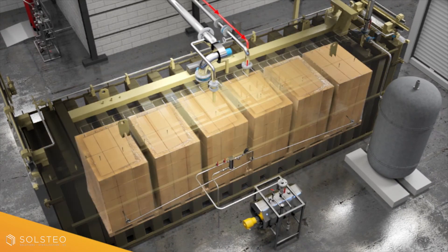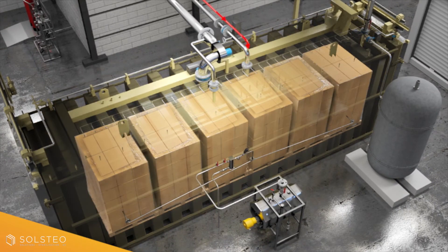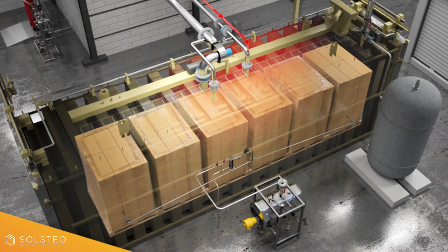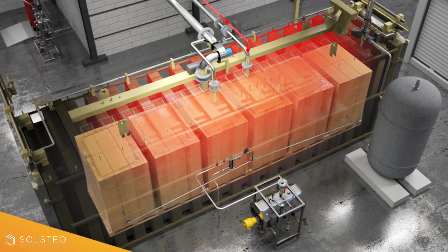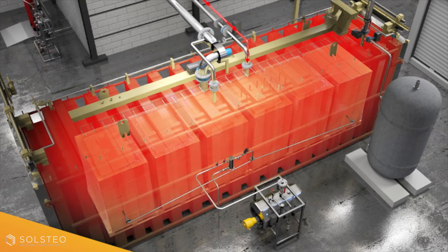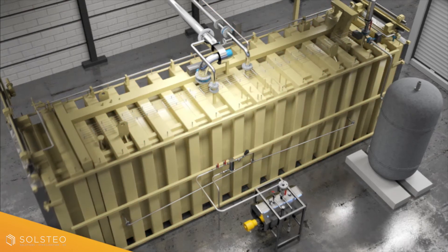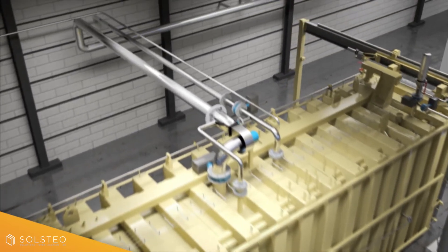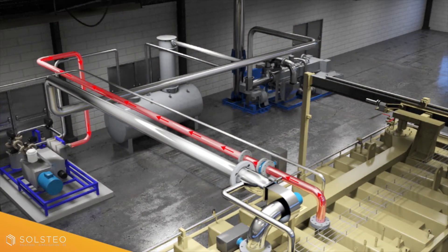The gaseous EO is finally injected into the chamber. During exposure time, EO penetrates cartons, blisters, and bags, even through product membranes. EO has this ability to reach the most challenging parts of a device.